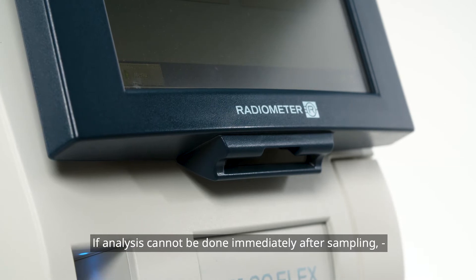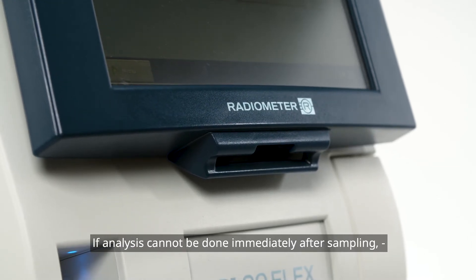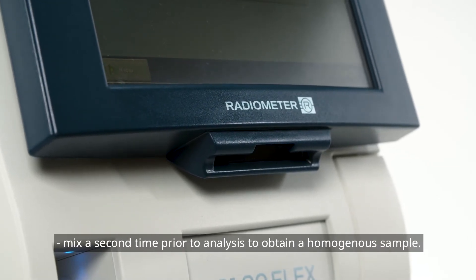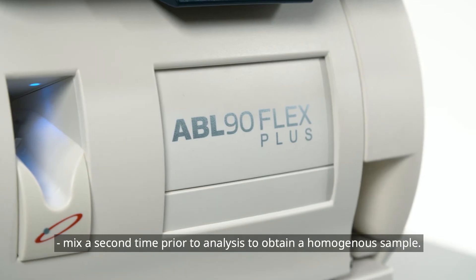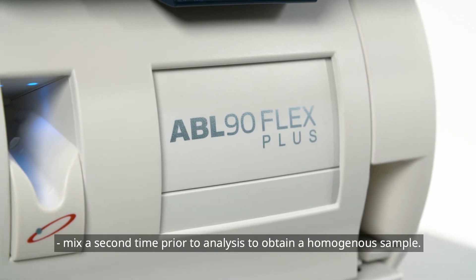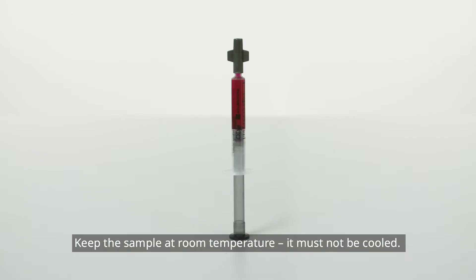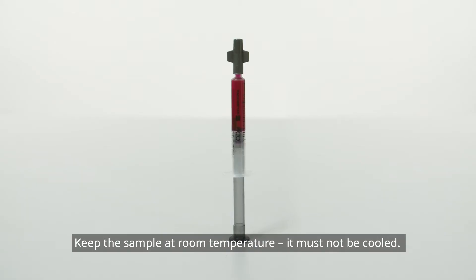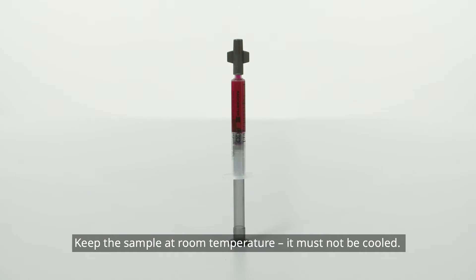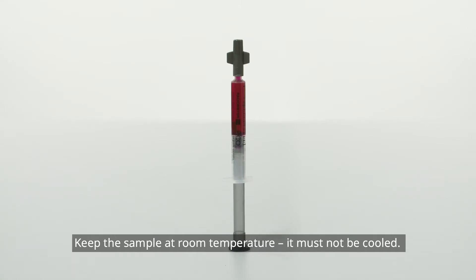If analysis cannot be done immediately after sampling, mix a second time prior to analysis to obtain a homogeneous sample. Keep the sample at room temperature — it must not be cooled.